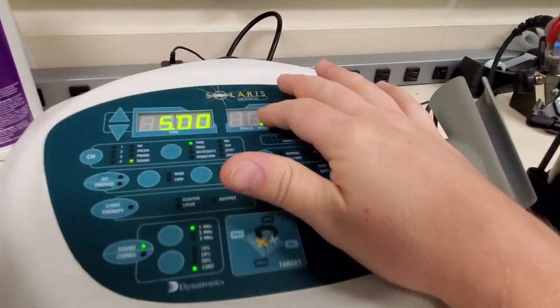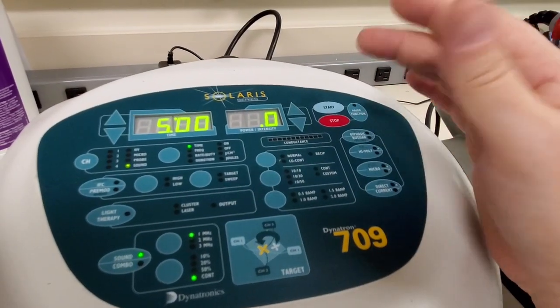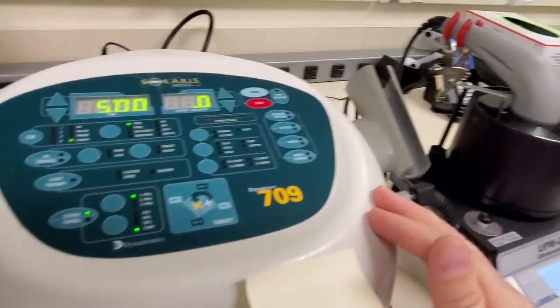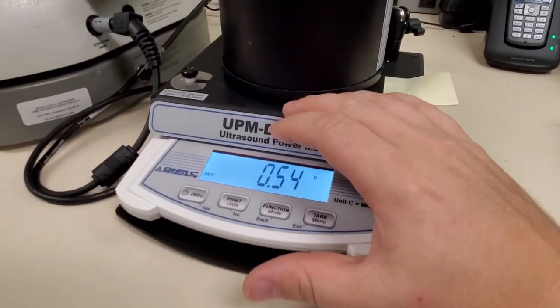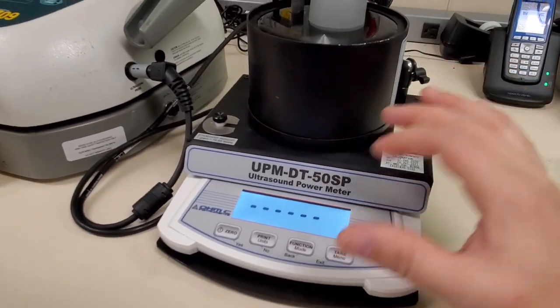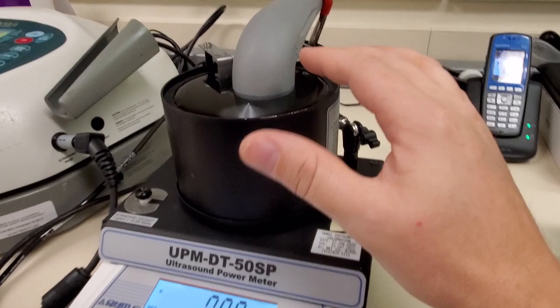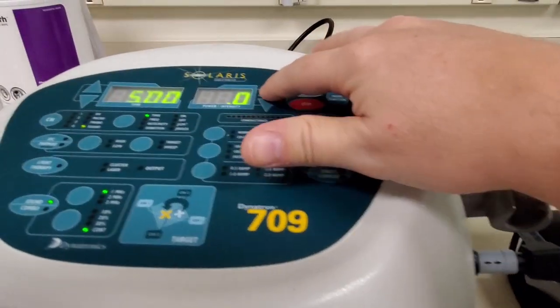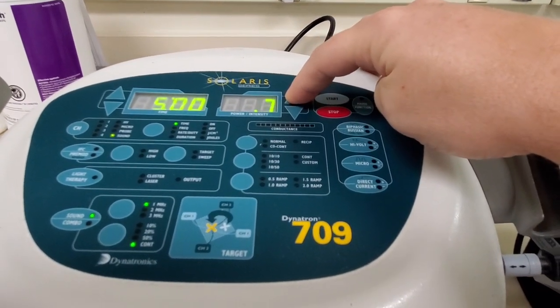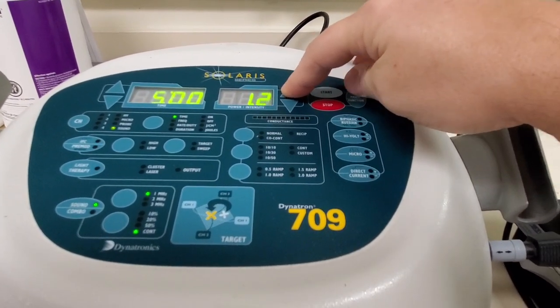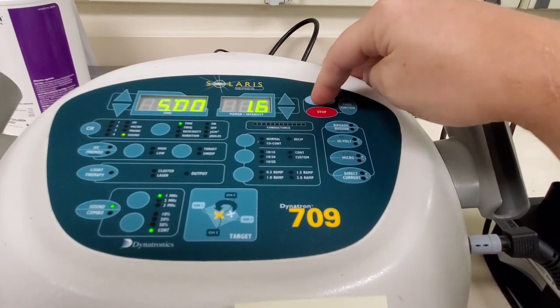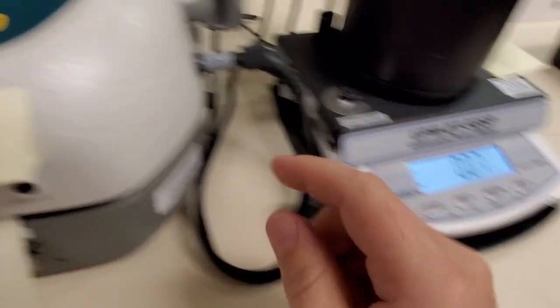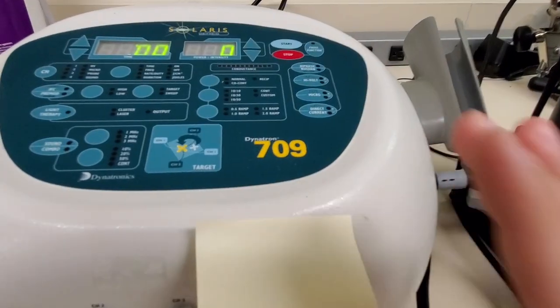This is extremely low wattage - this might be 5 to 10 watts, whereas your microwave at home is going to be probably 800 to a thousand watts. Now what we do to measure this, when the scale is zeroed out and your particular head is down, we then turn up our power. This isn't going to work for me because this unit is currently damaged. I hit start and I've got low to nothing.